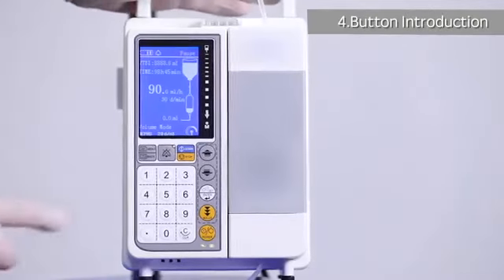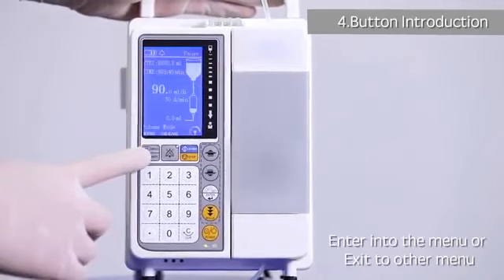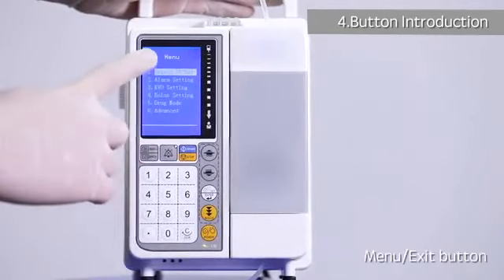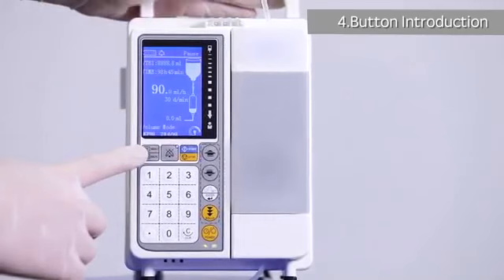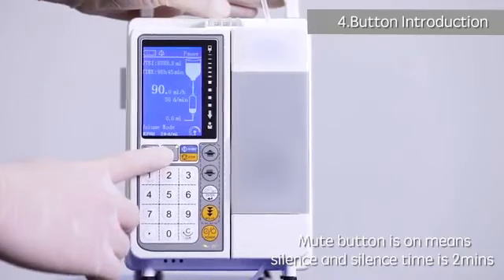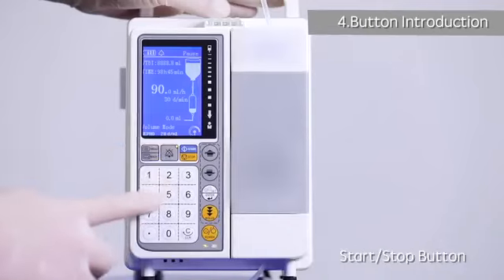4. Button introduction. Menu exit button: enter into the menu or exit to other menu. Mute button: when the mute button is on it means silence, and silence time is 2 minutes. Silence status will be cleared automatically after 2 minutes.